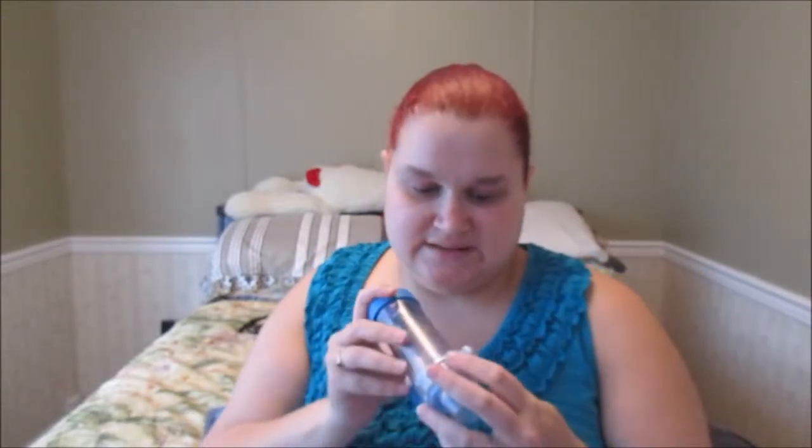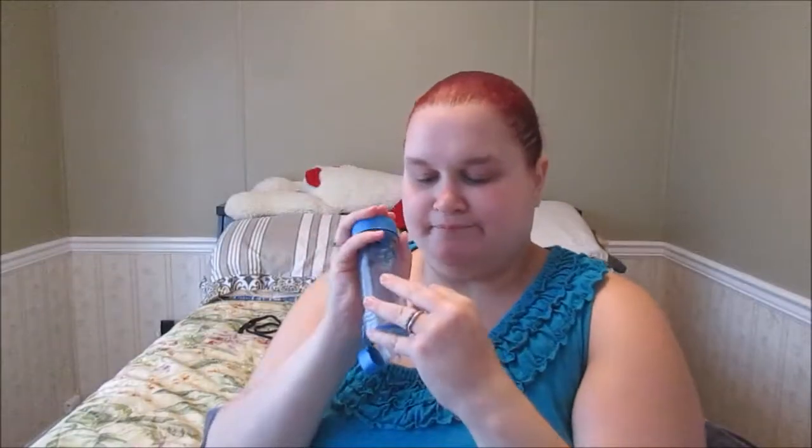One more thing: if you notice a little blue piece moving inside the aerochamber, that is just showing the airflow — it means it's working. There's a little hole that helps you draw in air. If that vent were clogged, you really can't get much air, so it aids airflow and visually confirms it's working.